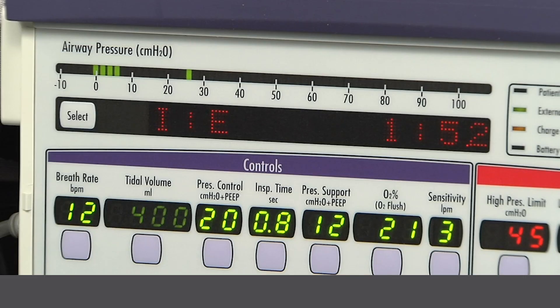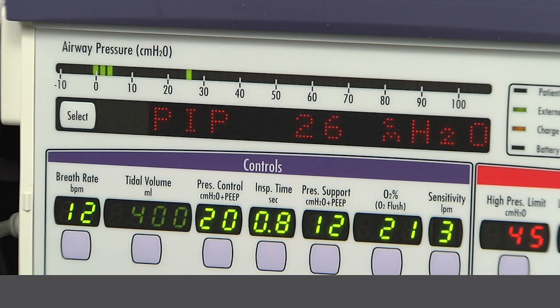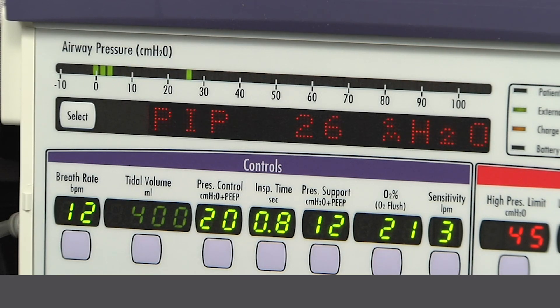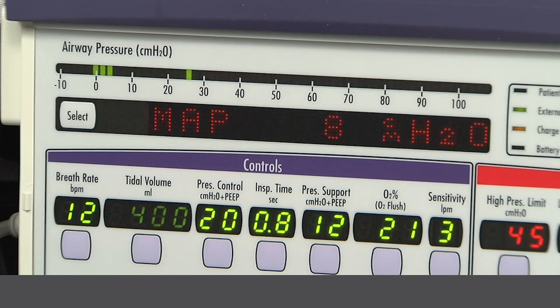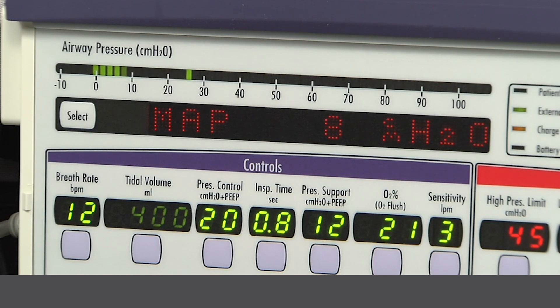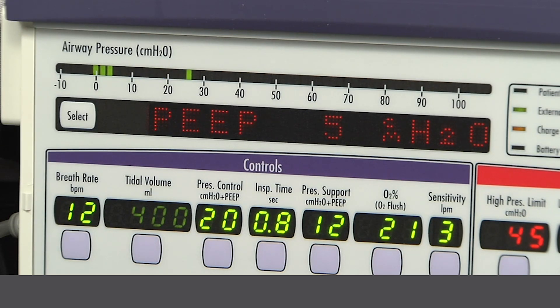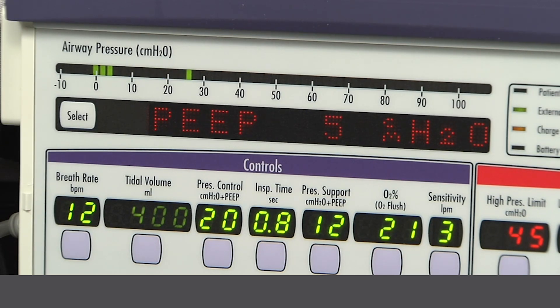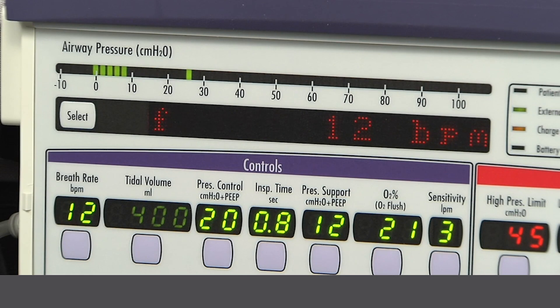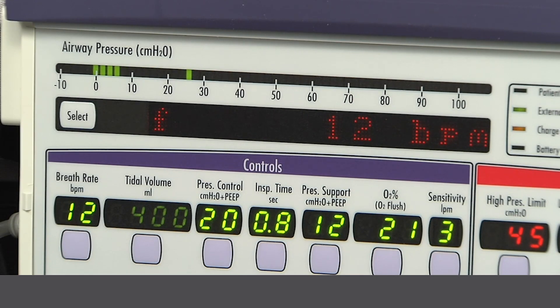This is the display window. The monitored data may be automatically or manually scrolled. To manually cycle through the data, press the select button. Each press of the select button displays the next data item.